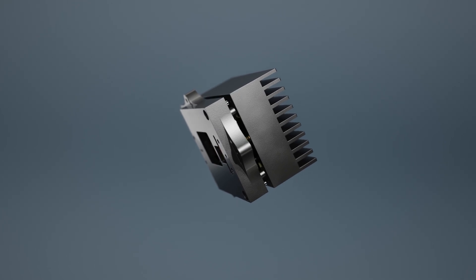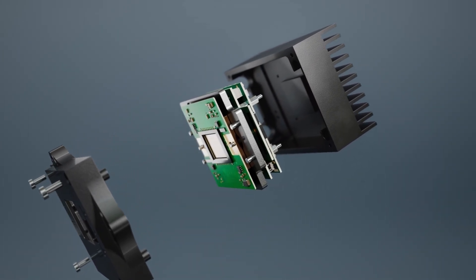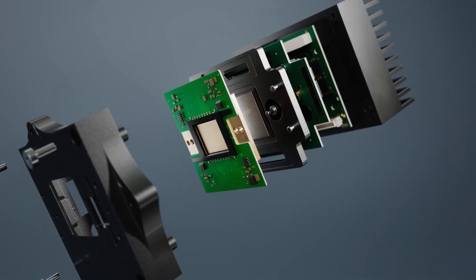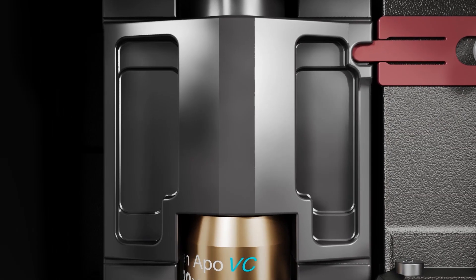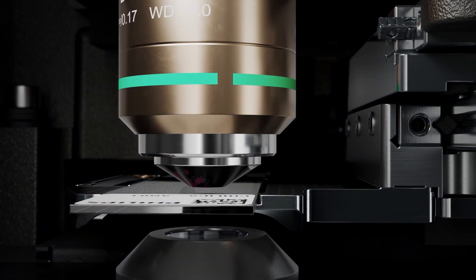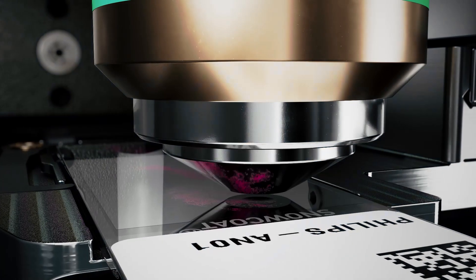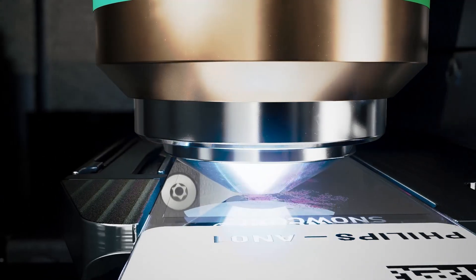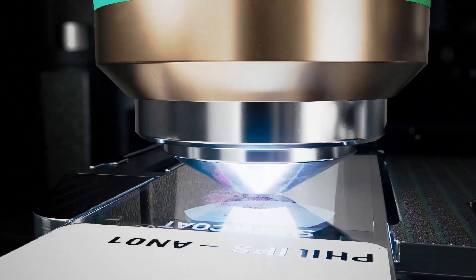With its 3D-ready hardware, the Pathology Scanner SG is prepared for multi-layer scanning. To make sure focus remains constant across various regions, Pathology Scanner SG employs an advanced focus actuator. Focus images are required at the full width of the sensor to maintain settings during the entire scan, while the focus objective is checked and adjusted every 16.5 micrometers, resulting in 99.5% first-time right image acquisition.